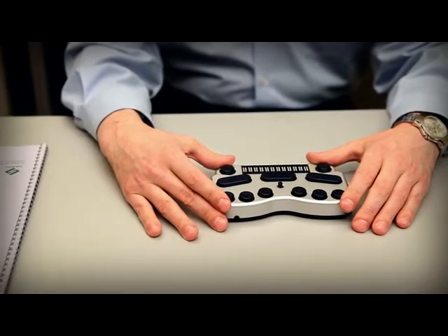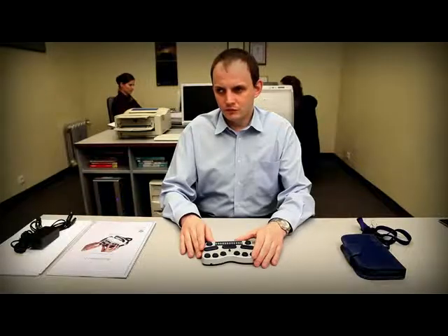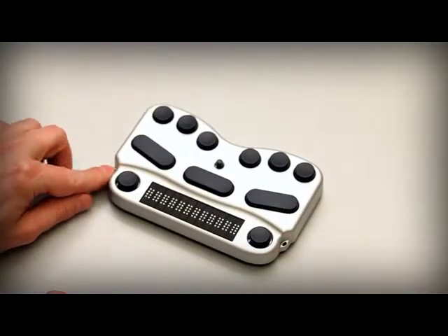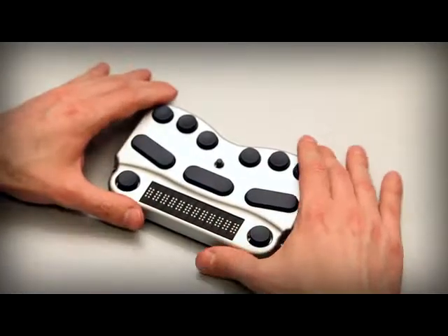On the sides of the Braille Pen 12 you will find two bumps. These have small holes in them and they are the attachment points for each end of the lanyard.